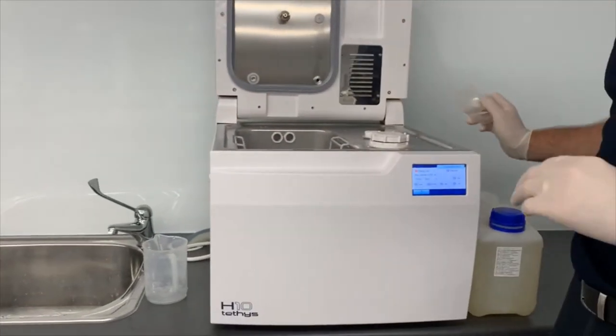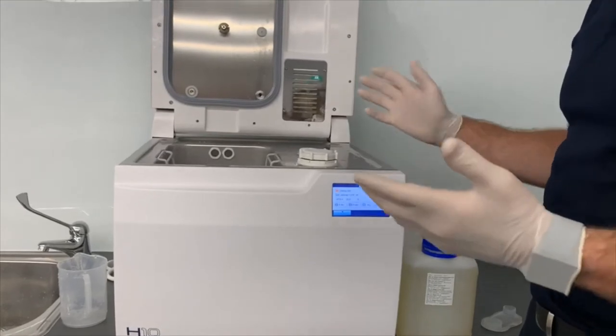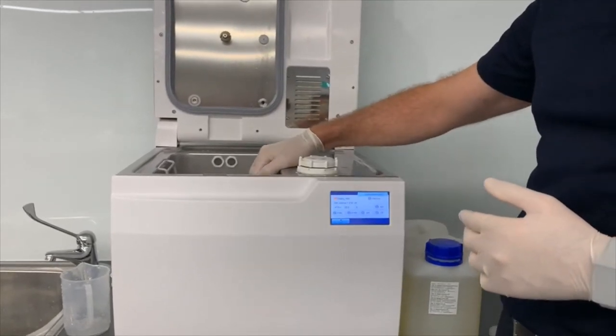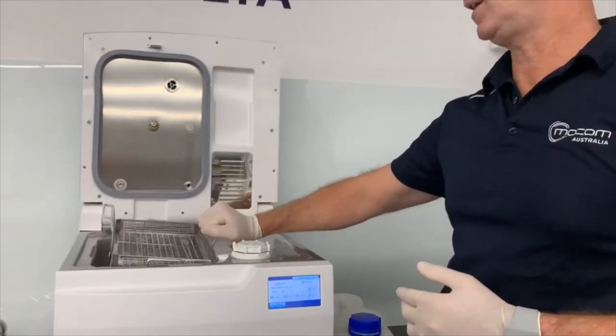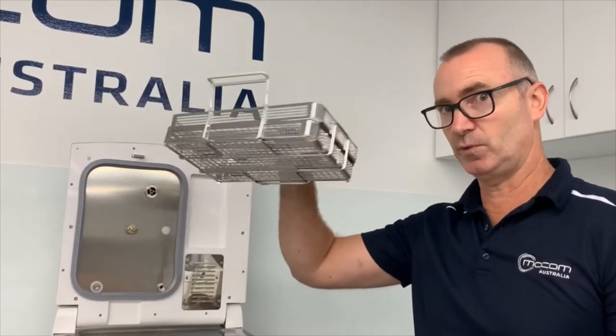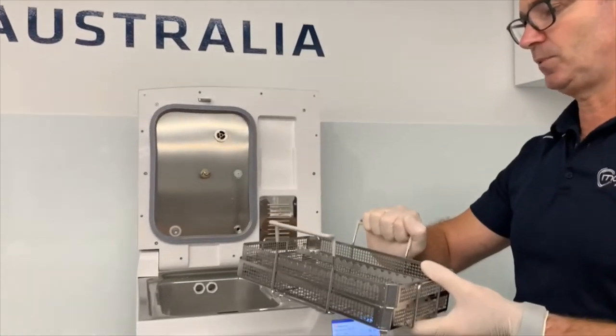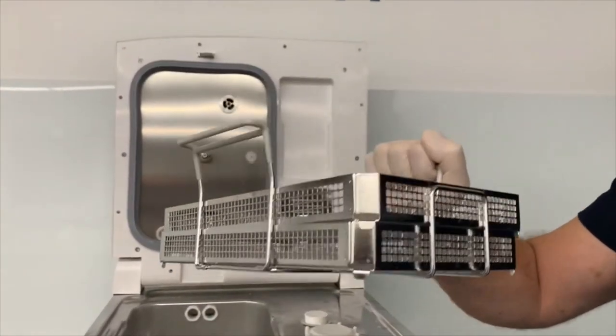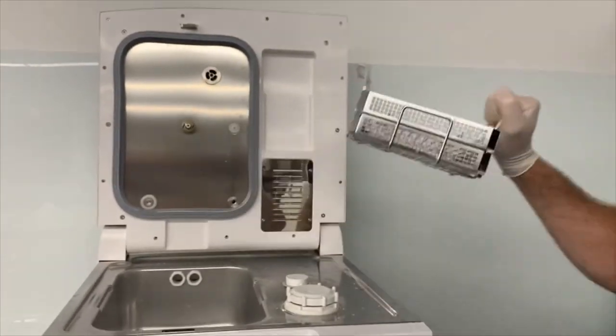Now if you just did that, that'll be enough. But why not use this as an opportunity to do a little bit of user maintenance so that by the time you come back to the clinic, your machine is maintained, ready for action. So we'll remove the tray support and we'll give that a good wipe down with a mild detergent and lint-free cloth.